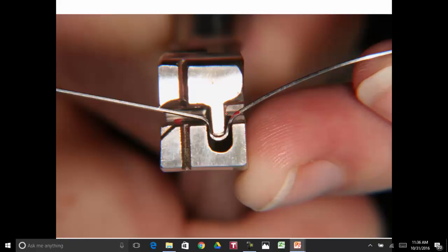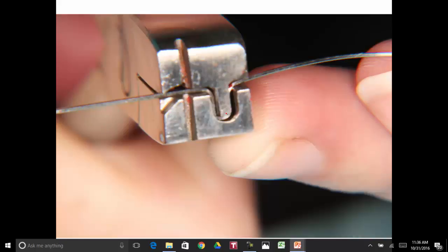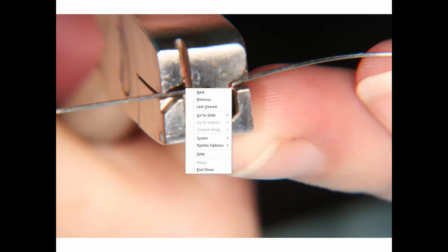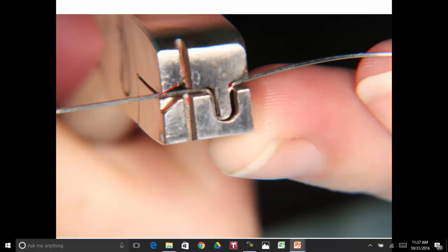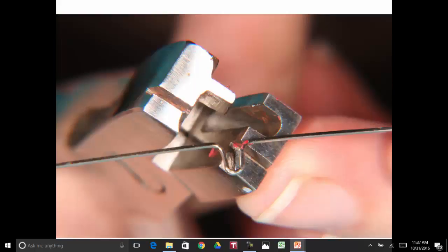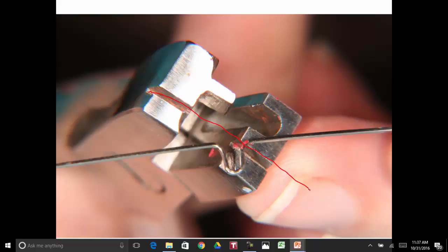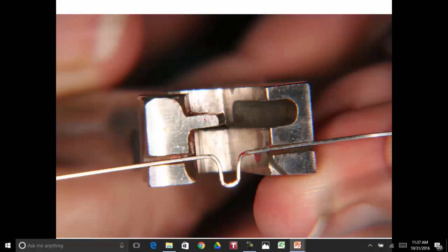The next one is already bent in here, and the mark that came from out here went into there, so this ends up being the mesial part of that omega. Now, we take it out of there. We're going to put it in this portion right over here and have it go in that way, so the plier will be turned sideways from what it is right now. We're turning it around, and you're going to lay the wire in this portion right here with the omega sticking out like that.